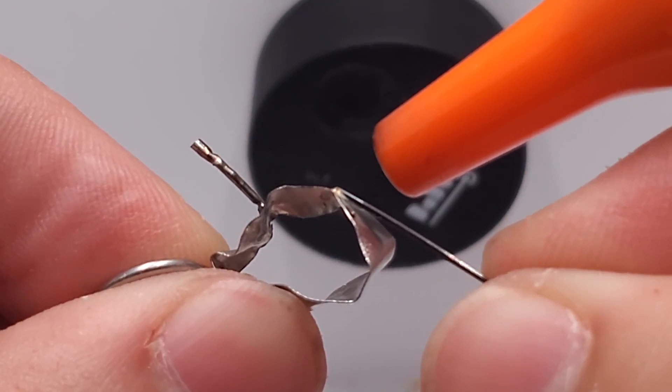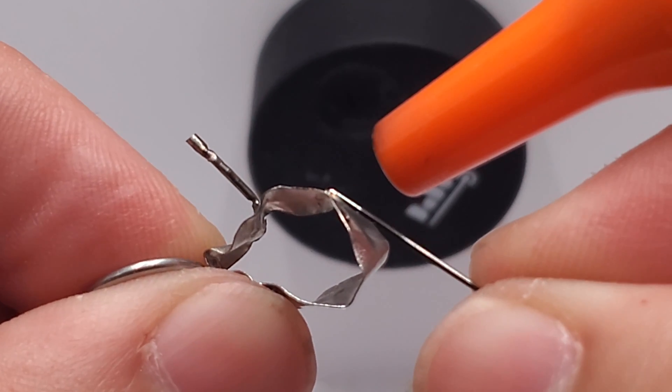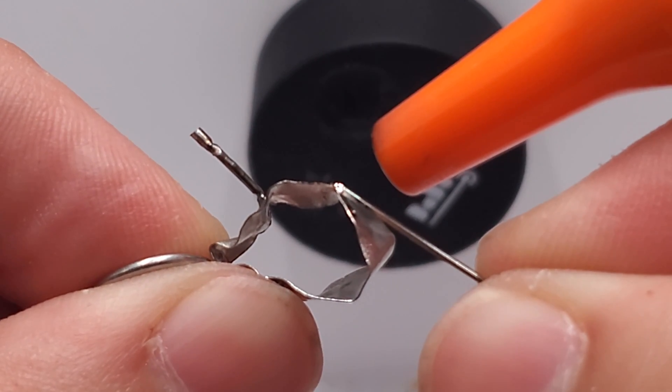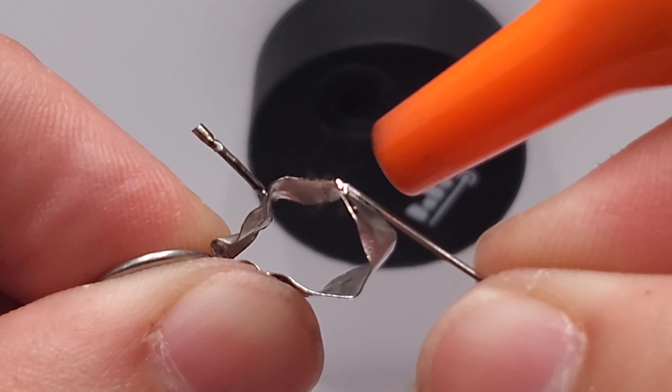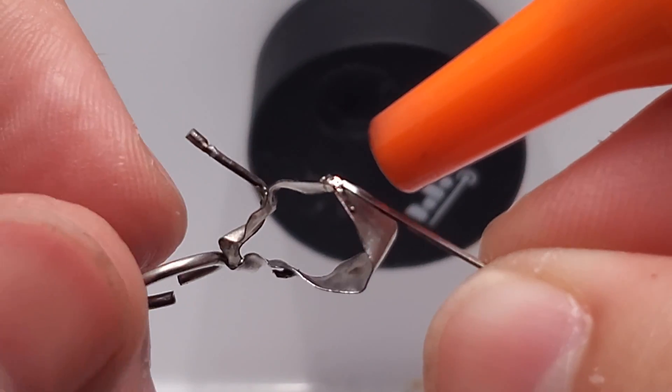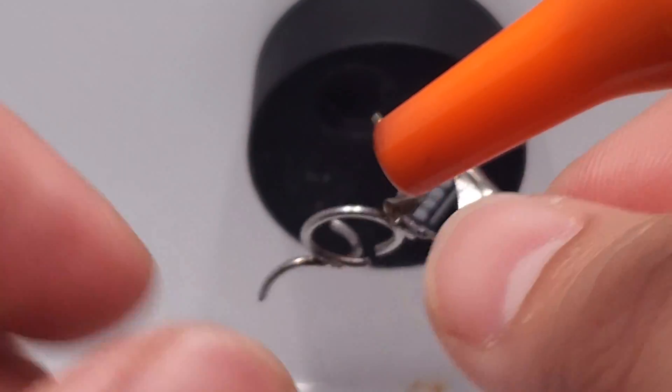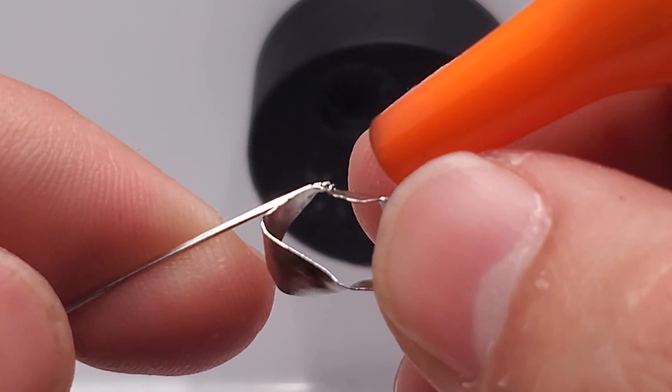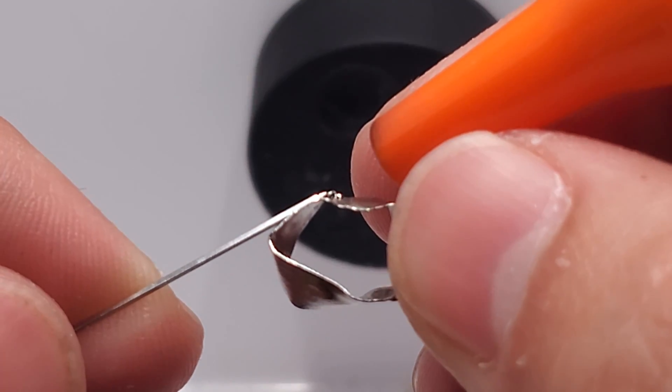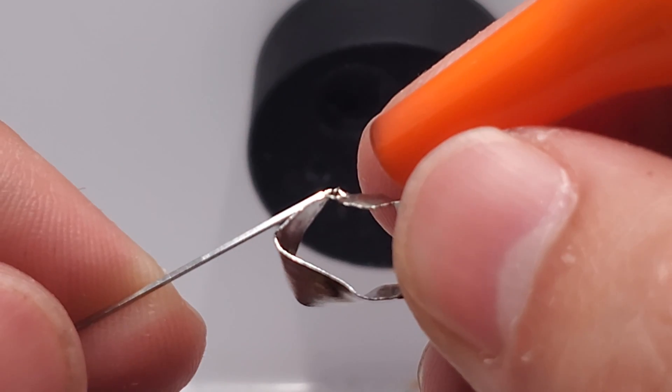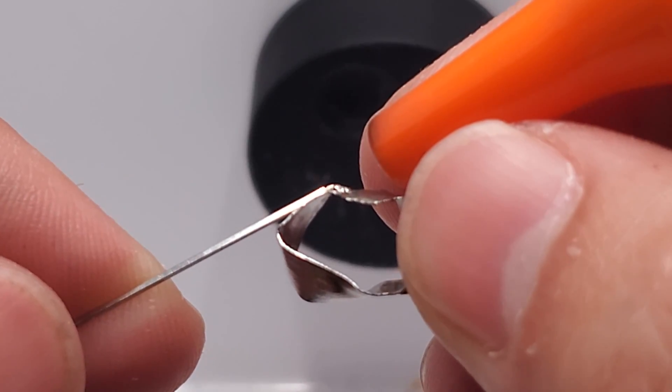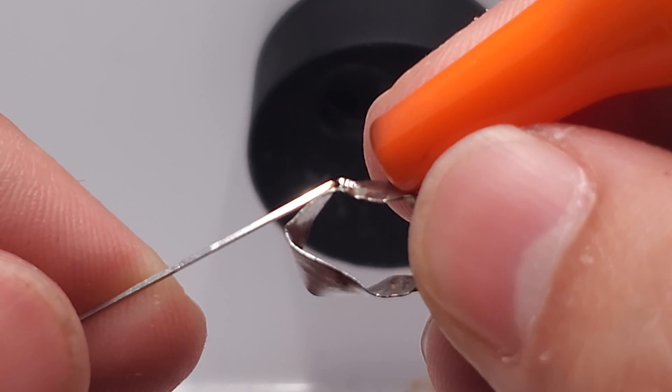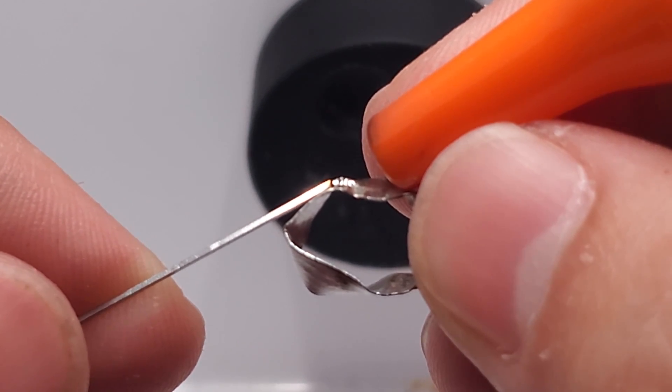Hitting on that corner, I'm not even touching the molar band at all. I'm just going to slowly weld till that metal comes down until I get a nice even joint, and then repeat that on the other side at a 45-degree angle. I'm going to go on the wire but close to that corner so it can flow down onto this molar band, reducing the risk of it punching all the way through.